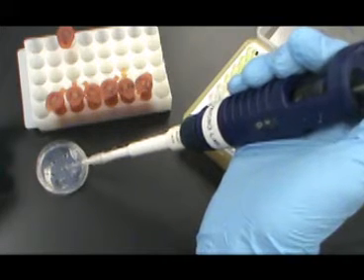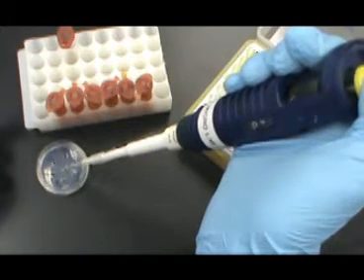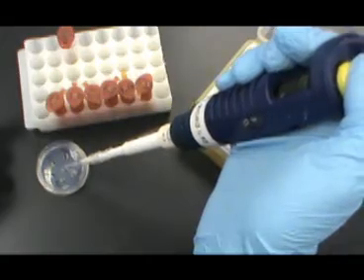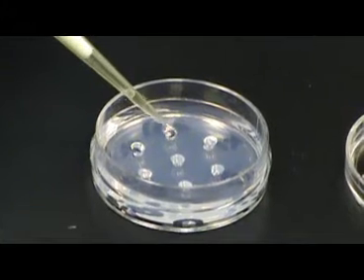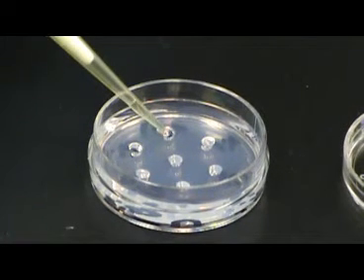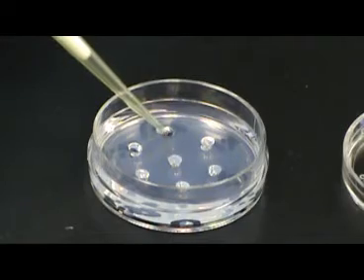Be careful when loading the wells with the antigen or patient sample not to puncture through the bottom of the well. Here, the micropipette is being used to load one of the patient samples.